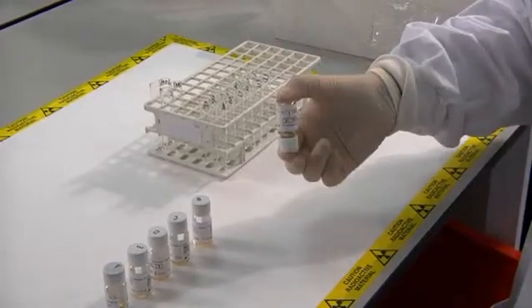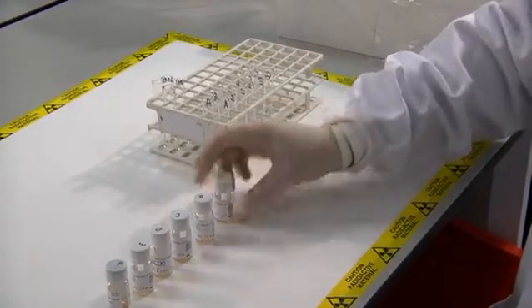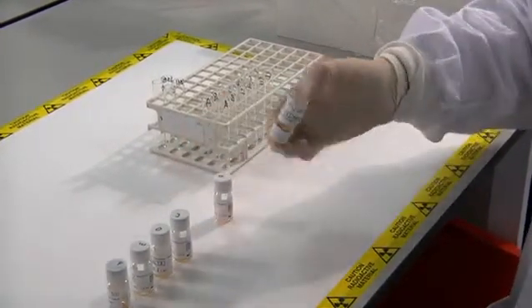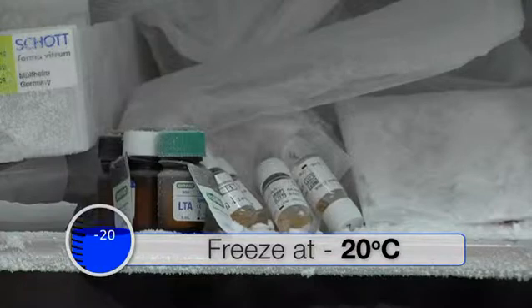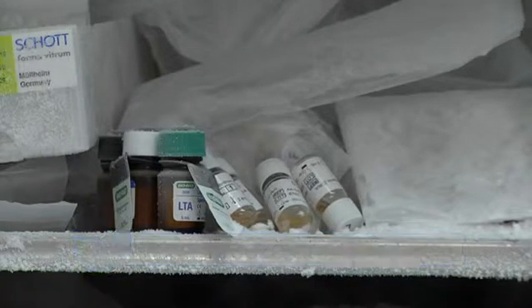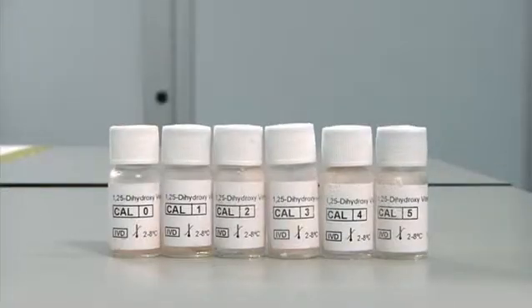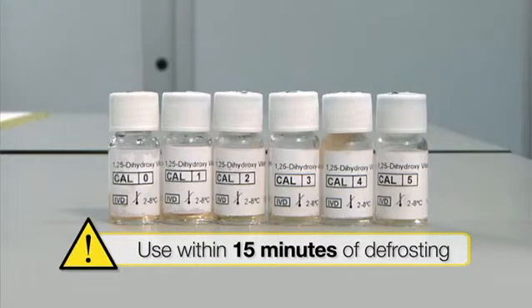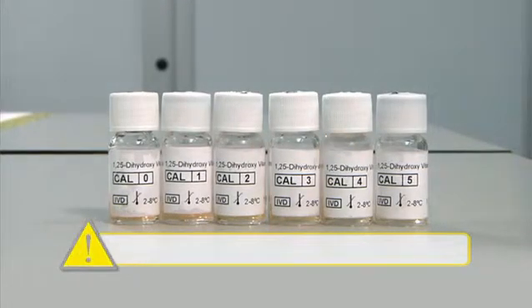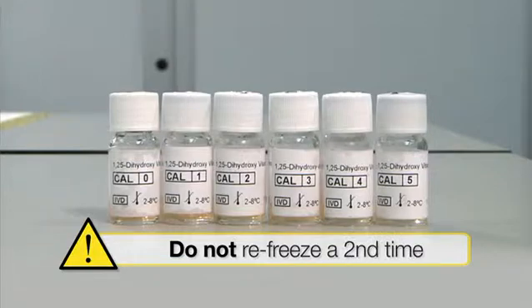Invert calibrator vials several times to ensure a homogenous solution. If calibrators are to be used again, refreeze at minus 20 degrees Celsius within 15 minutes of reconstitution. When defrosted, use within 15 minutes of thawing. Do not refreeze a second time.